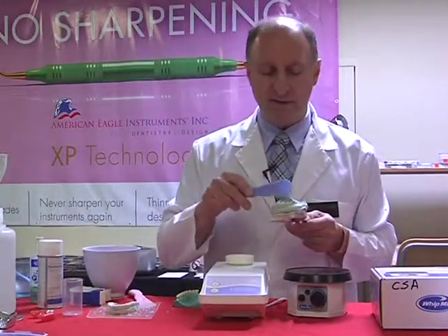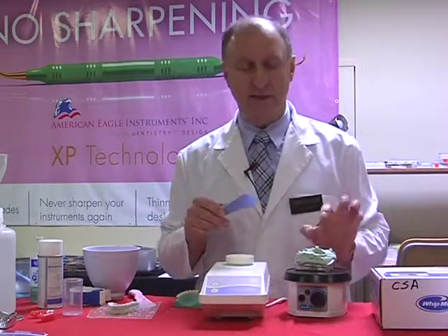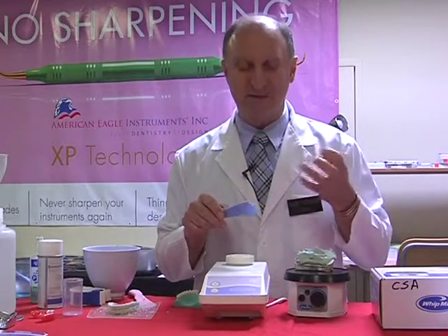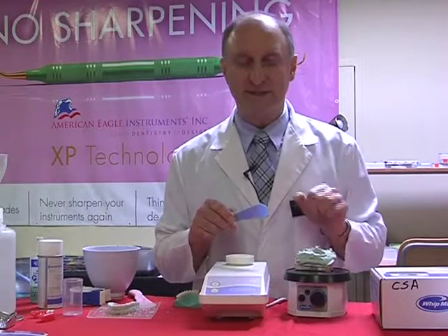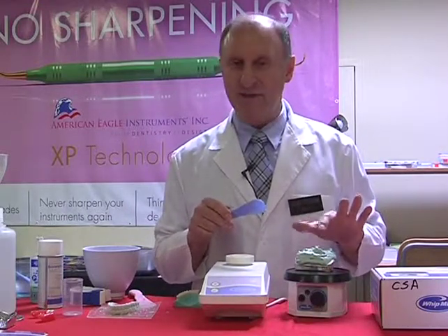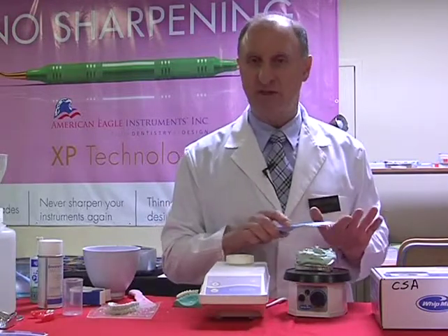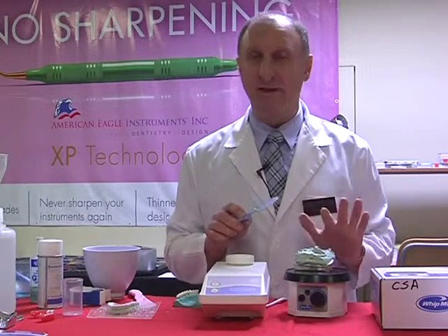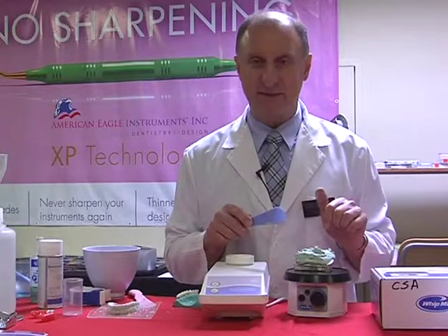At this point I want to ensure that my stone that I've mixed, there's still a shiny surface. That's where the material is still starting now, obviously, to go through its initial set. Once it's reached the initial set stage, that shiny surface disappears, and the material, of course, becomes a lot thicker. And that's the point where I want to shape the top of the model that I'm forming. So I'll let that set a little bit longer, and we'll come back as soon as that's happened.